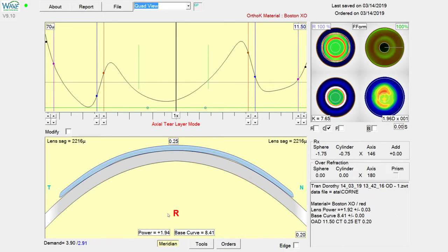Then we're going to adjust the base curve. We're at a power of about 1.94, and our new power is going to be, if we change it by half a diopter, around 2.44. So again we'll add the multiplier in so this goes a little bit faster. We're going to click up here at the right control point. This flattens the base curve. You can see the base curve getting flatter here and power changing correspondingly.